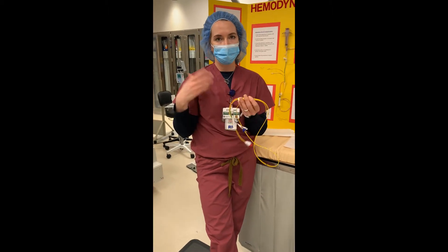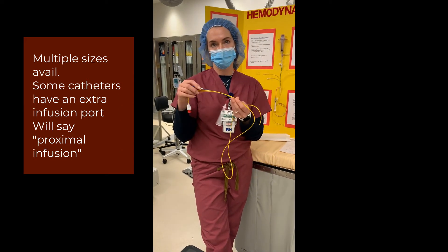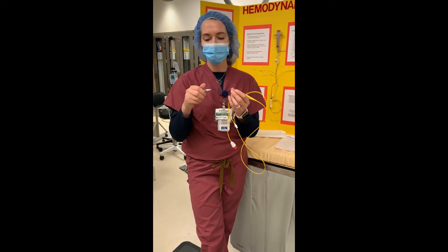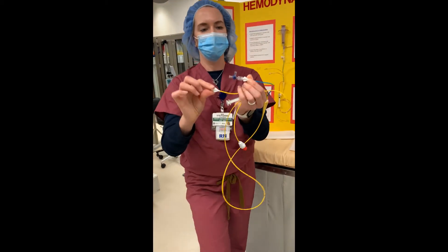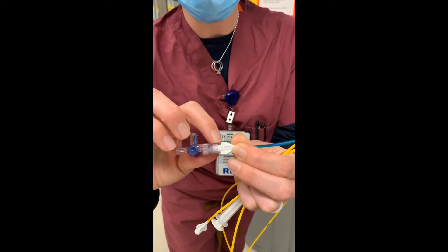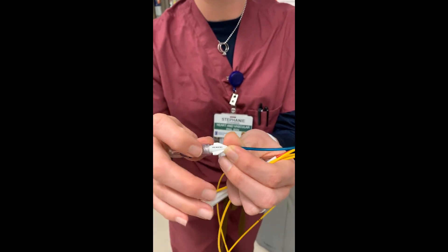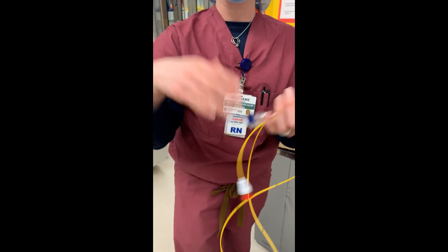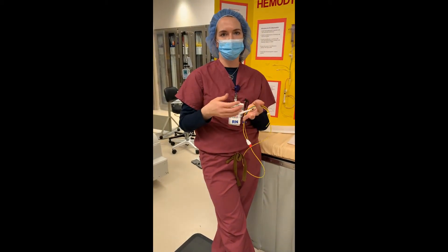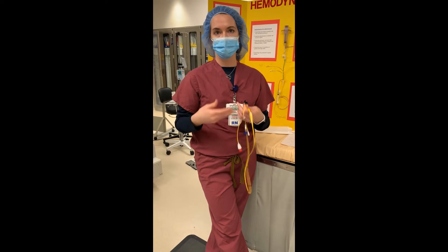We also have a 7.5 French Swan that you may see occasionally — that's just going to have an extra infusion port on it labeled 'infusion port.' All of these ports are labeled: this one says 'PA' or 'distal,' and this one says 'proximal inject.' If you have an infusion port it will say 'proximal infusion.' We call that a VIP Swan — it gives you extra access to infuse medications, vasoactive drugs, or anything the patient might need.